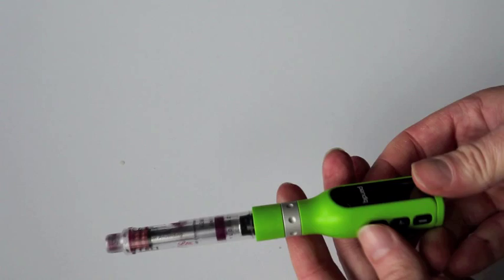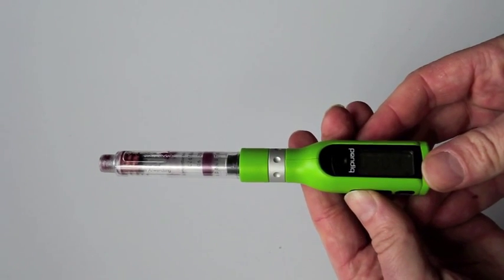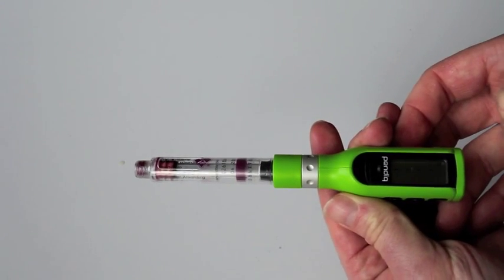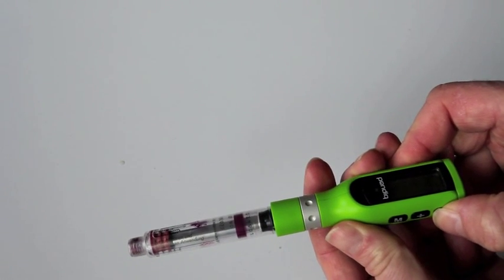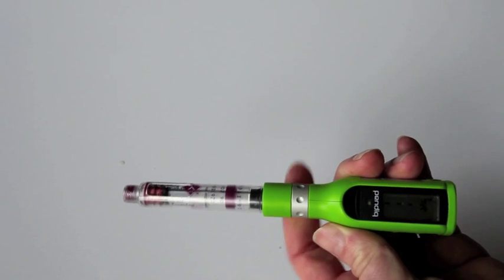Now you have to press M four times — one, two, three, four. So now we see the little row of dots across here. And now we press minus. We've got to hold that for a couple seconds. Now it's going to go ahead and start rewinding.